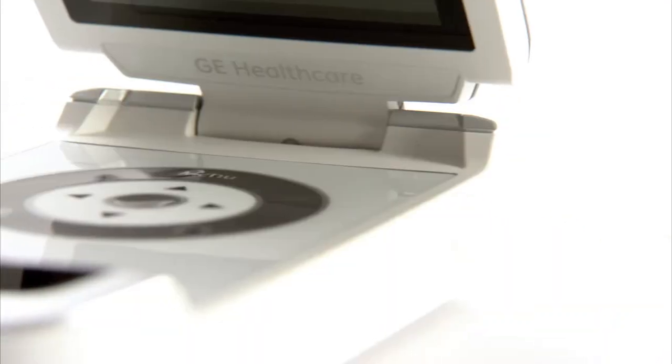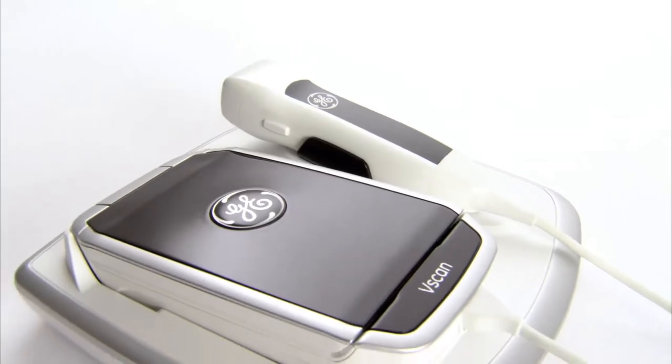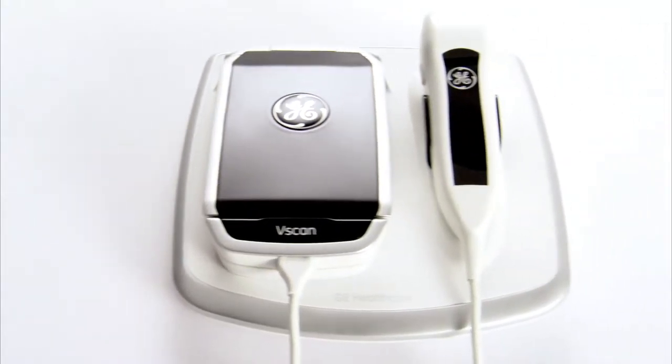Portable ultrasound for years has been a dream of many clinicians. They want to take the technology of ultrasound and take it to the patient bedside.